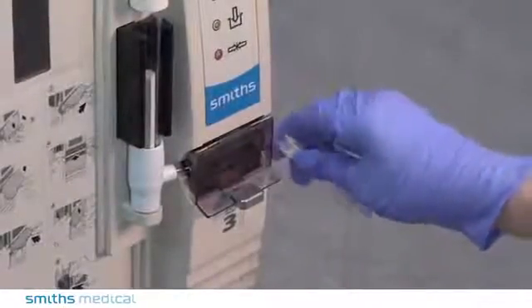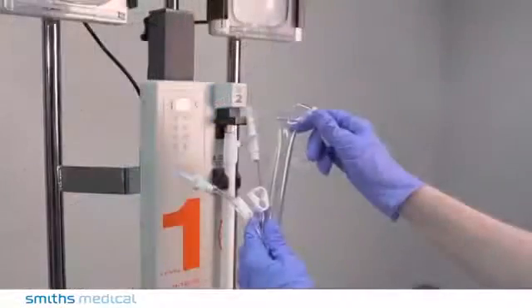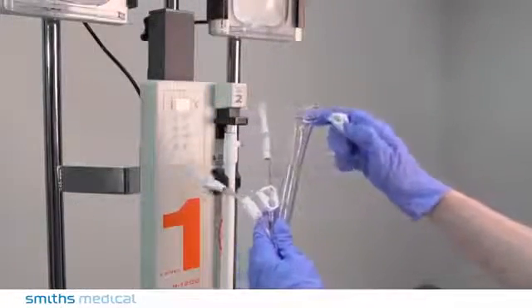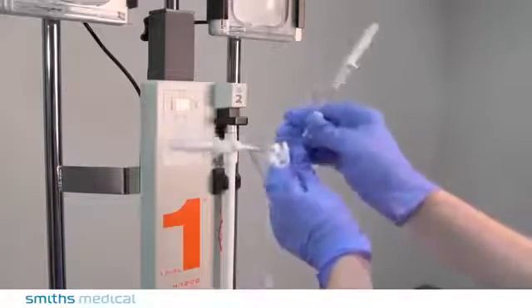Close the pinch clamp below the filter assembly. Close all pinch clamps and the roller clamp below the drip chambers. Remove the air from the fluid bags.